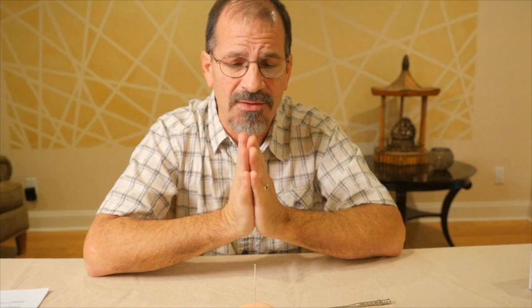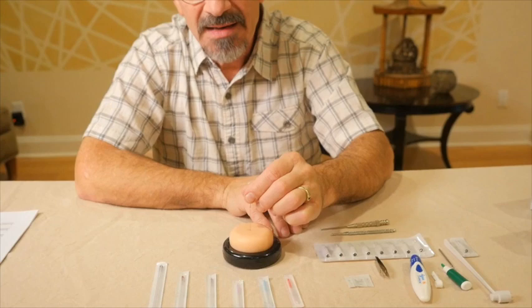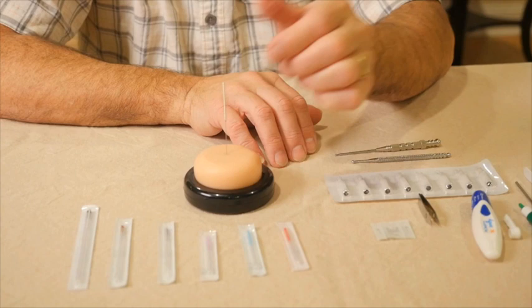Let's take a look at these needles — number 3, number 5, number 8 — different sizes and different lengths. The larger needle I've just shown is a reusable needle. We don't use reusable needles very often. In the United States, most jurisdictions require or recommend that we use single-use disposable needles.